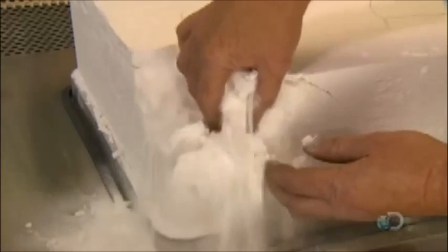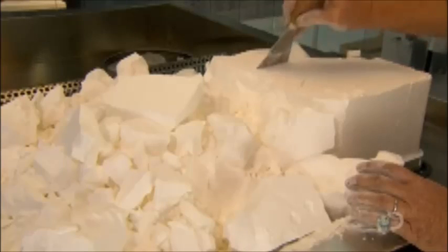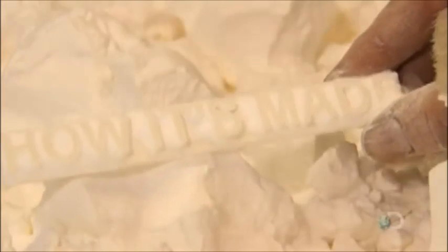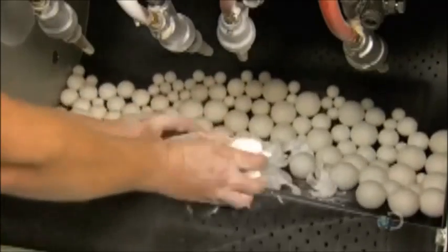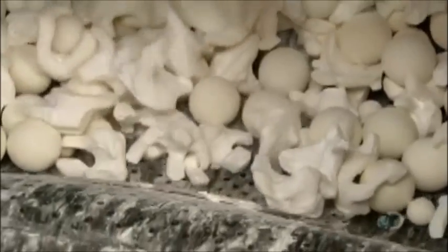Once the printing's done, it's just a matter of breaking up the unsolidified powdered plastic and fishing out the templates. They brush off the bulk of the remaining powder. The posts on the bottom are the points at which pins affix the template to the bone during surgery. Next, the templates go into a tumbler containing plastic balls and air jets. As the drum rotates for 20 minutes, the balls knock off and the air jets blow off most of the remaining powder.